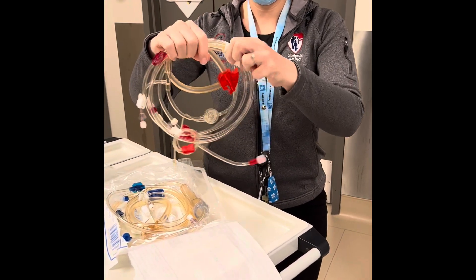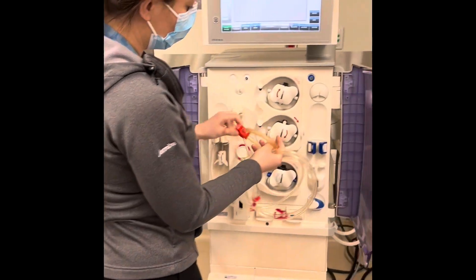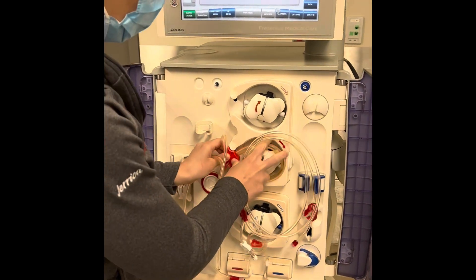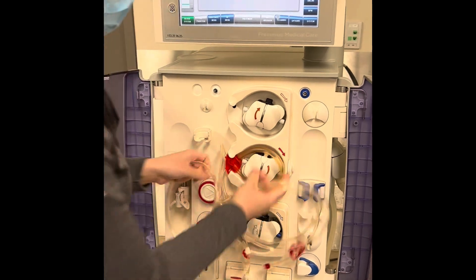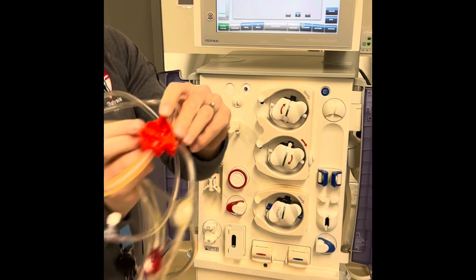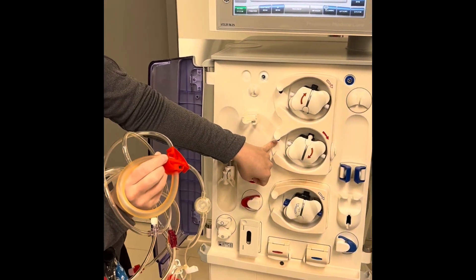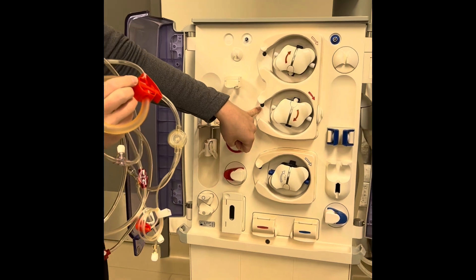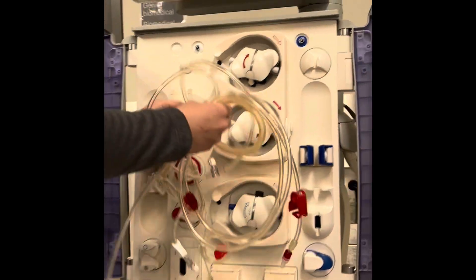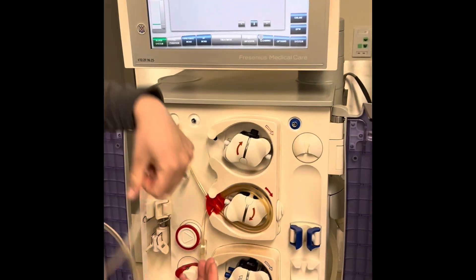I'm going to take my arterial segment and release the first clamp. I'm going to take my blood flow segment and place it in the correct aspect. If you see right here, there's a little rigid piece that has to go right against the sensor, and this is going to cause your arterial dome to open. I'm just going to thread it through the tubing.